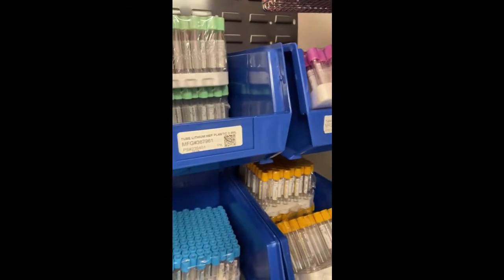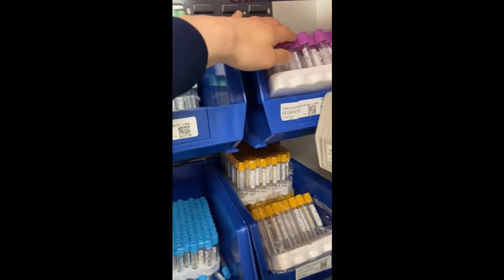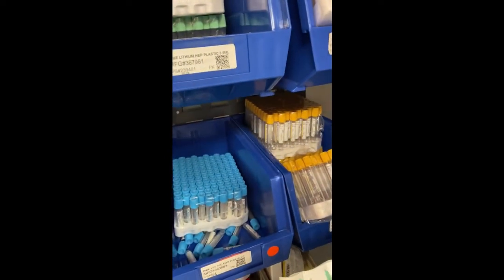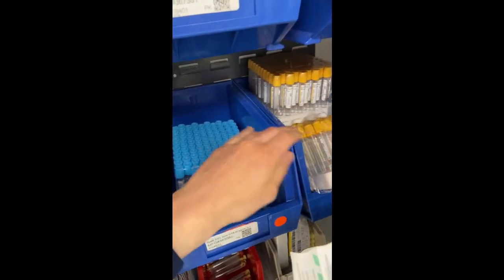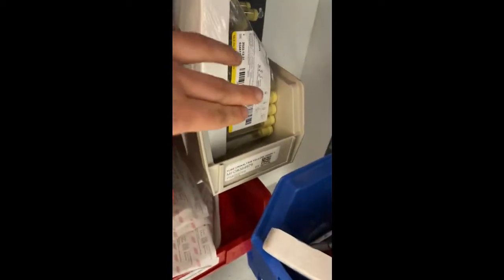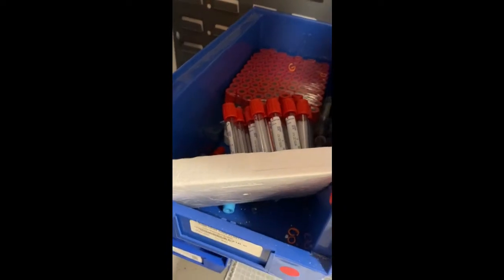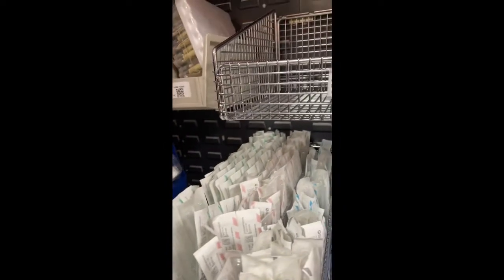So here are just different tubes for blood, different stuff. Like one could be troponin, CBC. Every hospital has their own color system. Here's PTT. So those are the blood tubes. Here's the urine. Here's a drug urine, urinalysis, etc. And these are just waste tubes, usually. These are the urine cultures.